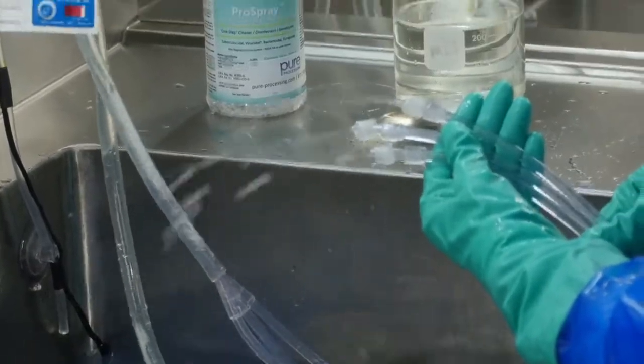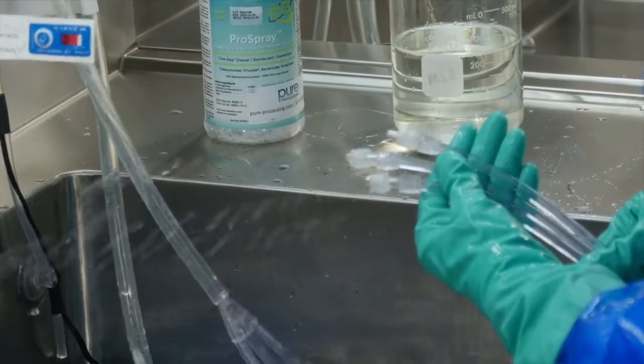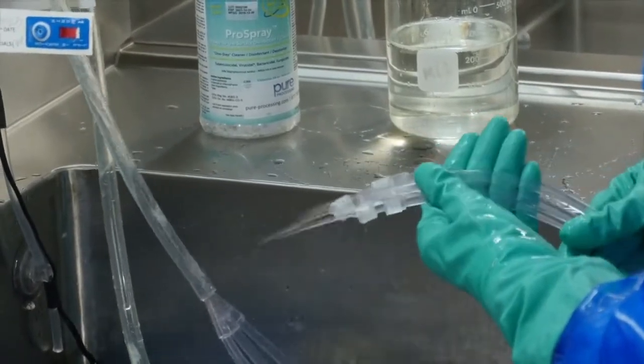Once the contact time has elapsed, carefully remove the end caps and rinse out remaining disinfectant with water.